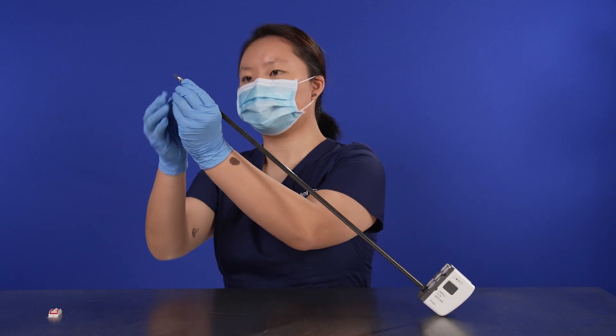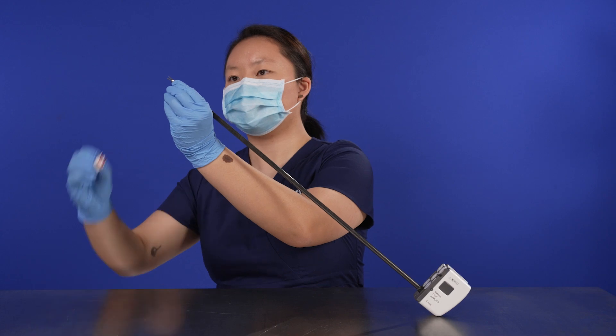Hold the instrument wrist completely straight and the jaws open. Firmly press the clip into the jaws.